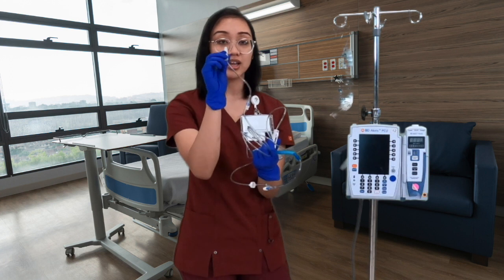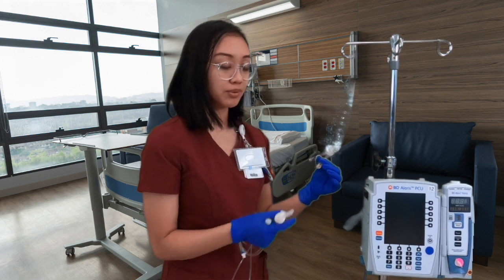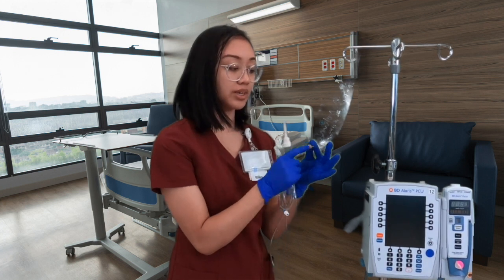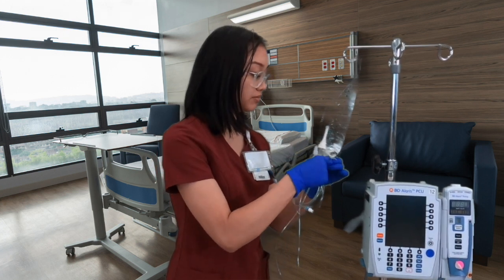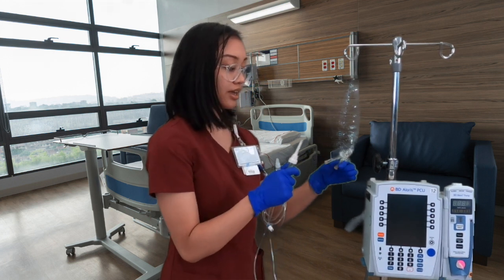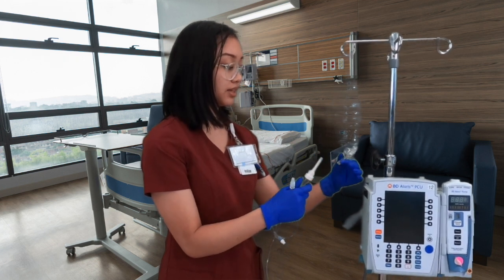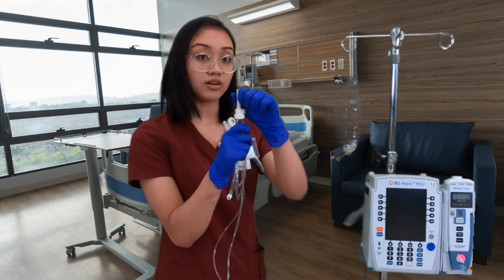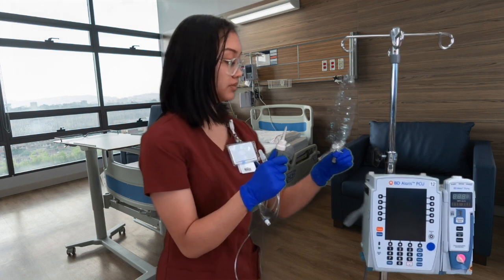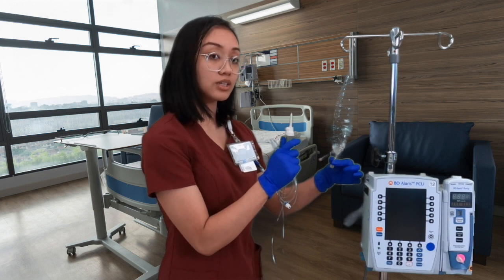Let's get to spiking. I have a trash can below me so I'll discard things as we go. First, twist off the wings and discard them, making sure the spike stays clean. The next thing is to take off the cap, making sure not to touch the tip. The best way to insert is to spike it in and then twist.